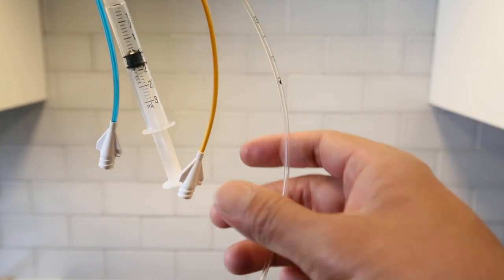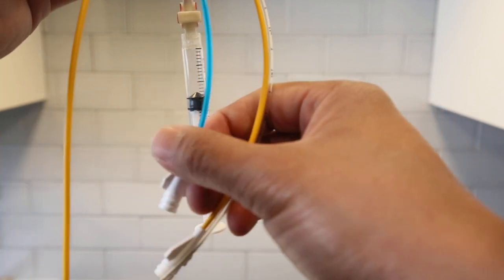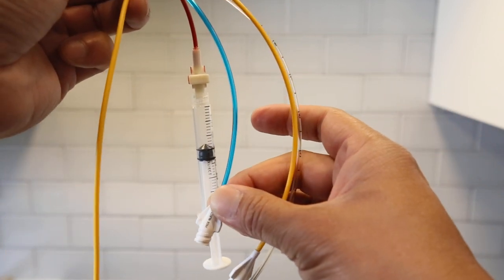Wait, let's see. This is distal, that's at the very tip. This is the proximal injectate.